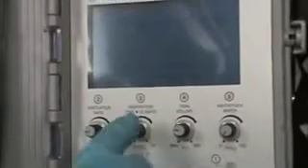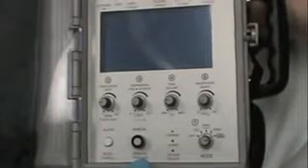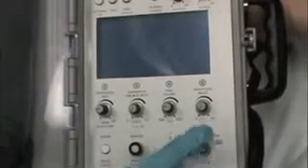So that's 1, 2, 3, 4, 5. So if we needed to quickly get the ventilator ready to set up on a patient, we'll show you how quick it'll go. So we start over with the calibration mode. We put it on calibrate. Calibrate's okay. We select our mode. We'll say this is a very well sedated patient. We're going to go to the AC mode.